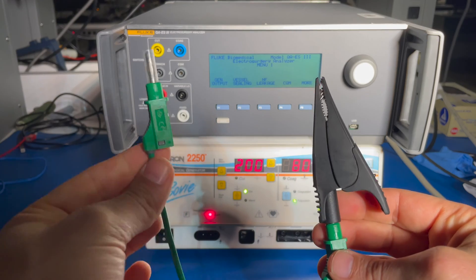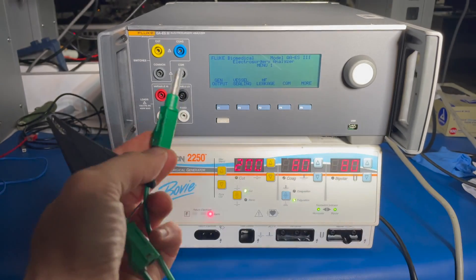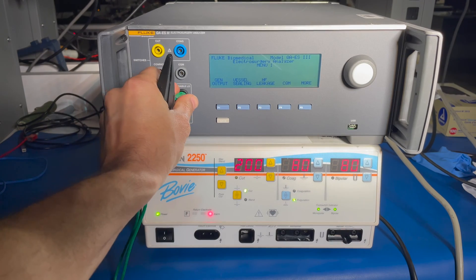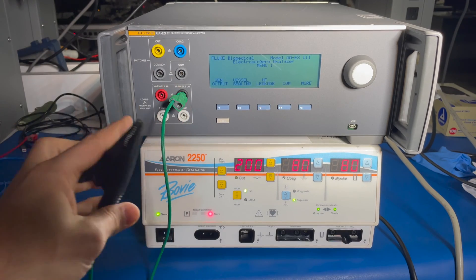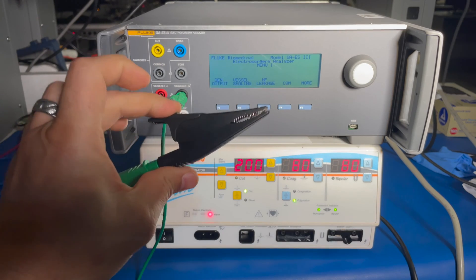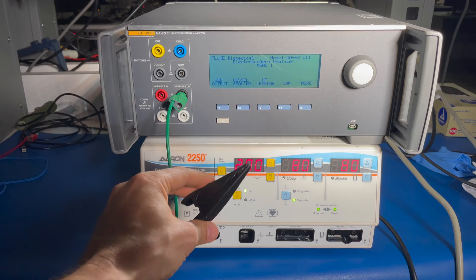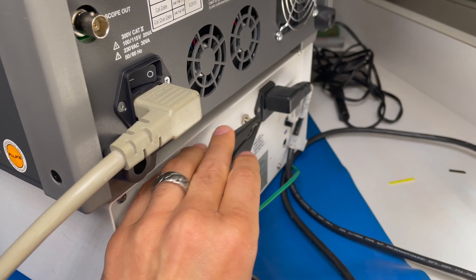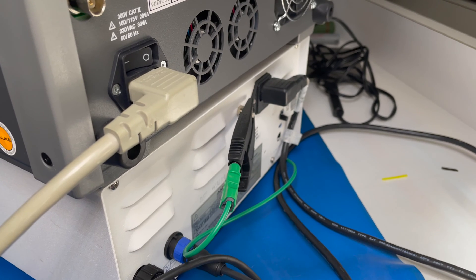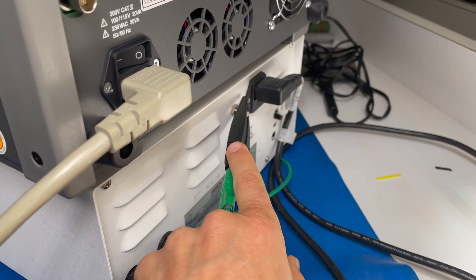One of the first things you want to do is grab your green cable and your alligator clip, and connect this to the variable low in the QAES3. Then you're going to connect the alligator clip to the back of your generator at the equipotential point. Here's the equipotential point on the back of your generator — go ahead and put the alligator clip on there. This is now connected to the variable low.